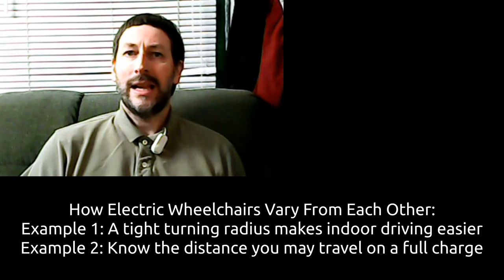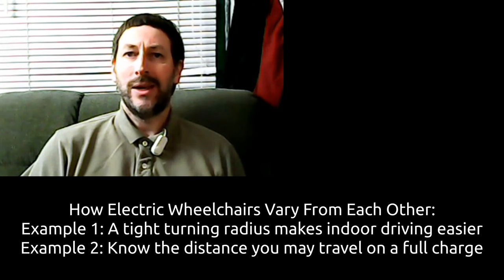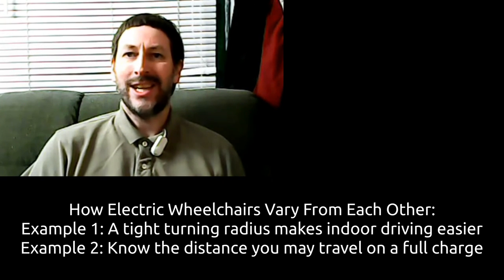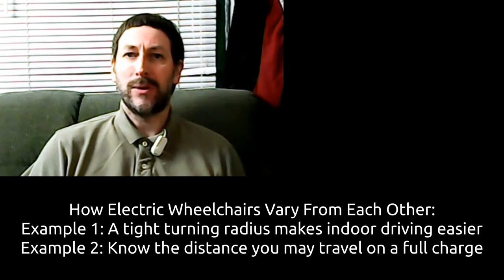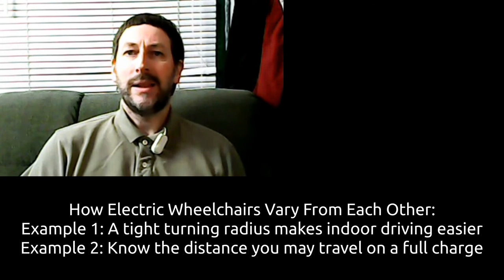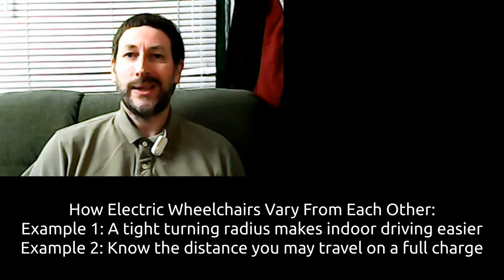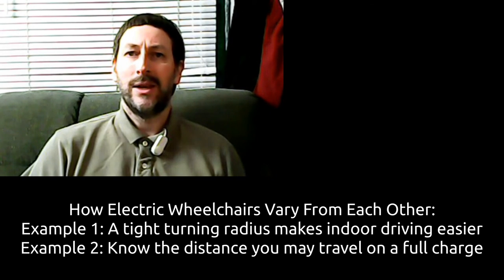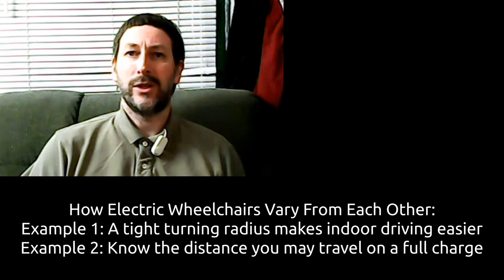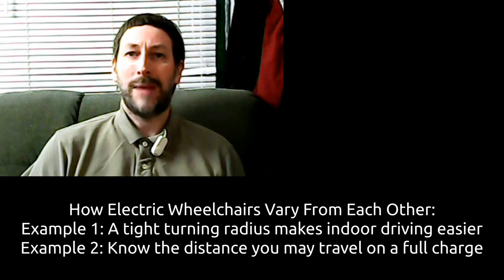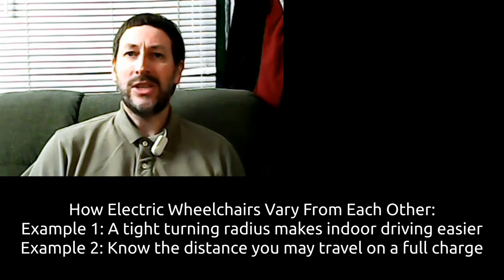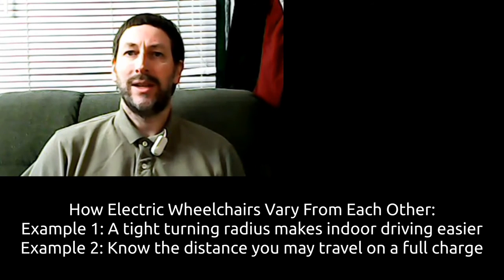Secondly, the placement of the powered wheel can have a big impact on the distance your electric wheelchair is able to drive. The placement of the powered wheel can affect the shape of the battery compartment and how it was designed, therefore determining how much battery power you're able to transport. These are two important questions to be asking when purchasing your next wheelchair.